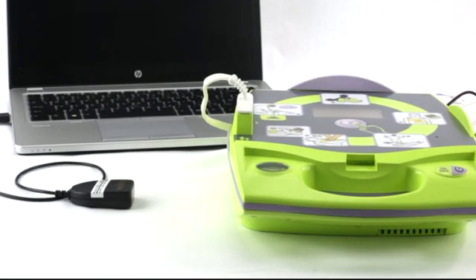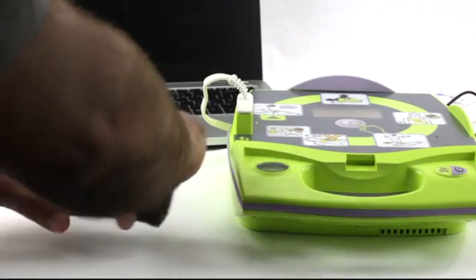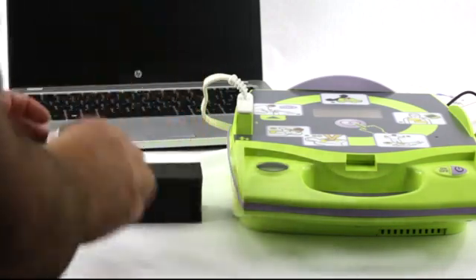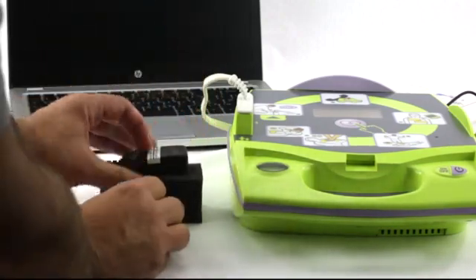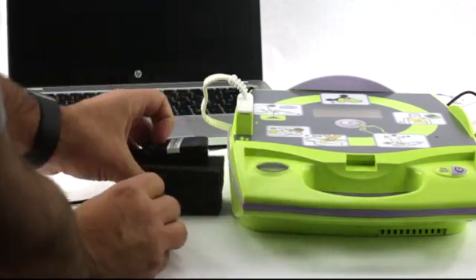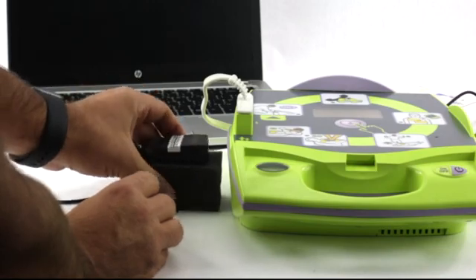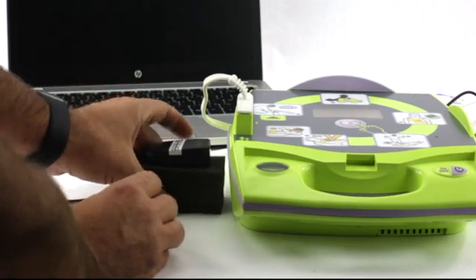Make sure you continue to keep the IRDA adapter pointed at the AED Plus. Propping the adapter up on a book or some other object can make this task a little less cumbersome.